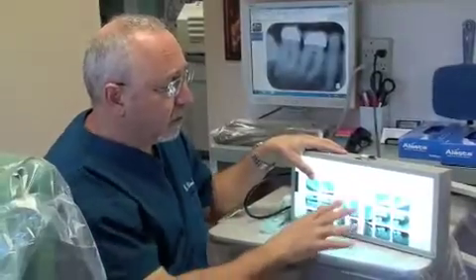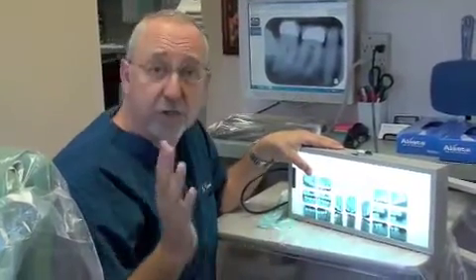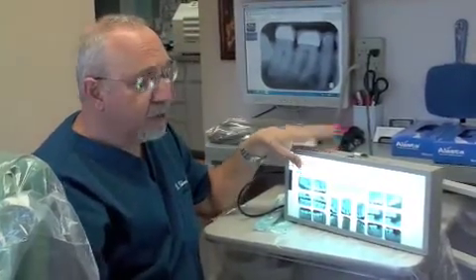But here's what I want to talk about. X-rays are, of course, a very important part of what we do in dentistry because it shows us things that we can't see with the naked eye. Now, traditionally, the x-rays that we've taken are ones like this. These are film x-rays, and you've all seen these over the years. There are a lot of disadvantages with these kind of x-rays, but we used them for years, and they certainly show a lot of things.